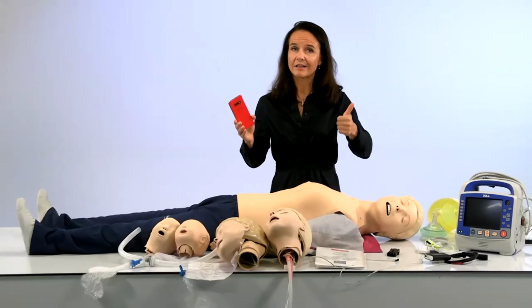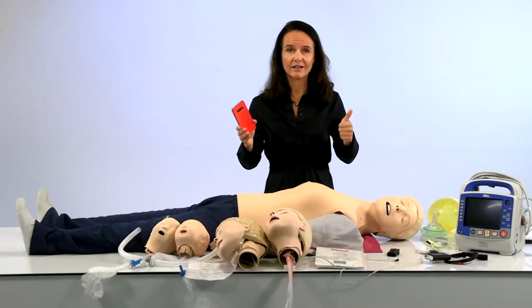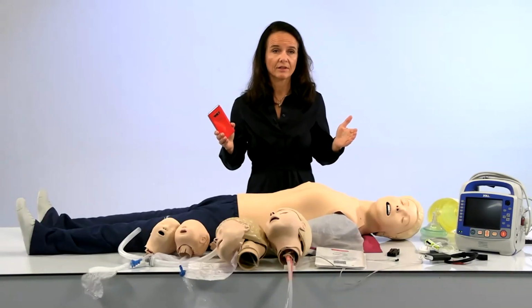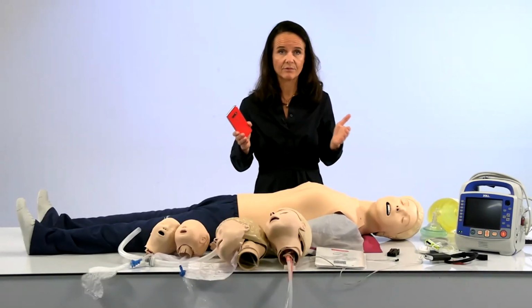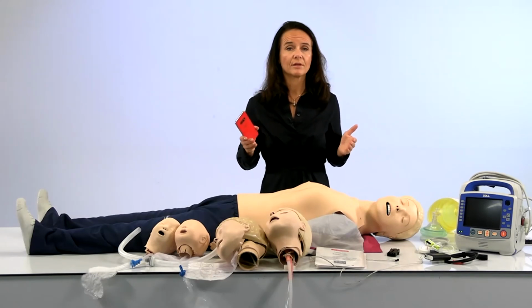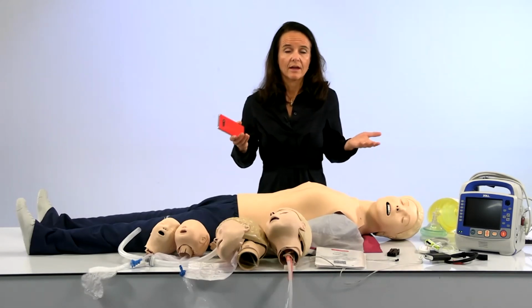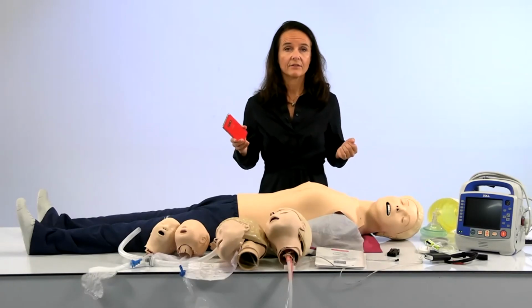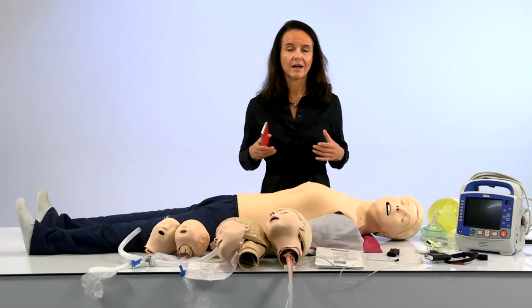So whether it's really good things, like you did a great job, you had great compressions, or you maybe spent too much time applying the pads, for example, which creates a pause in the session, it will also show you those moments where you can improve. And of course, this is a really great tool for instructors to be really visual with their students after a session.